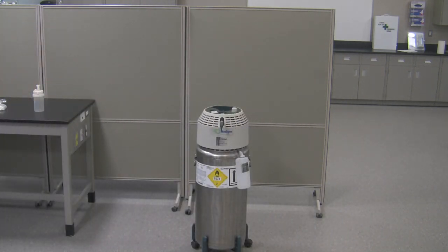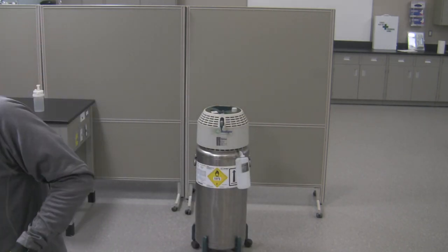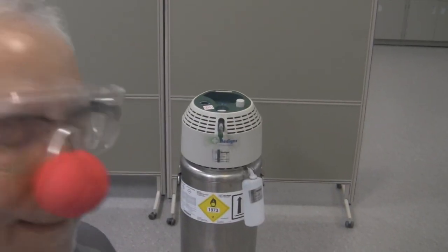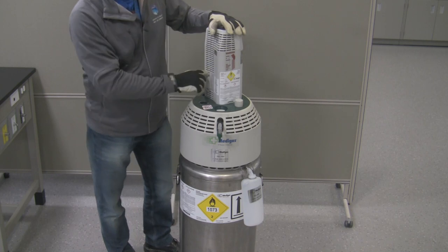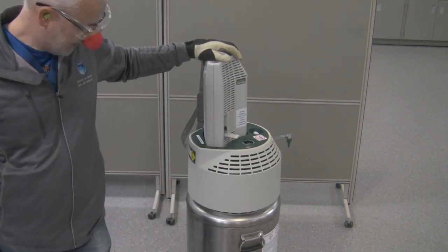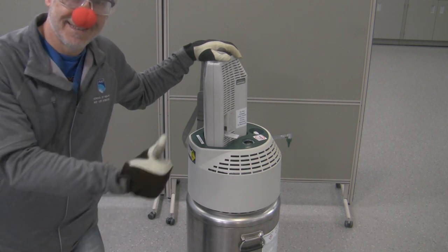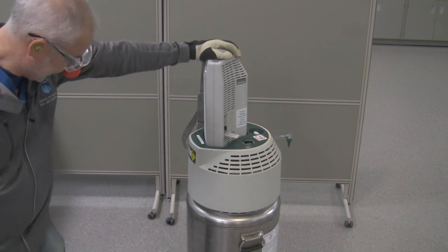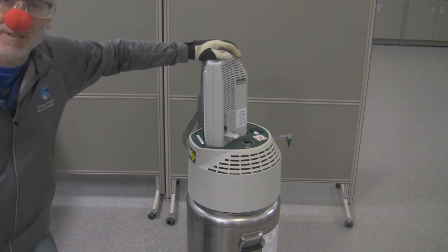So let's fill the container up. There's no liquid oxygen inside it — note the unique shape, it's going to fit onto the portable in a unique way. You're going to take the portable, line it up with the stationary, and push down. I'm going to pull this lever out right over here. You can see the lever's out. You hear that sound. Wait for it — it's almost done.